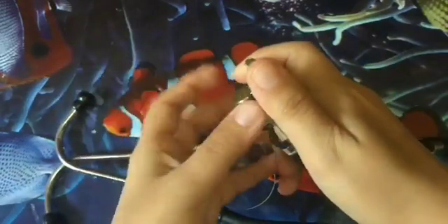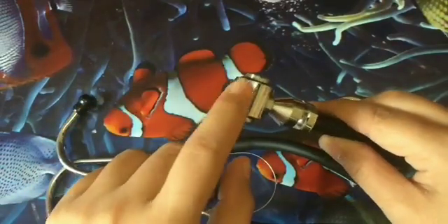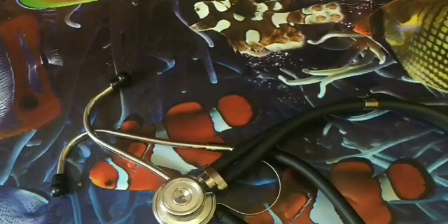This part is the drum. There are some top tips for stethoscope performance you should know before someone's examination.